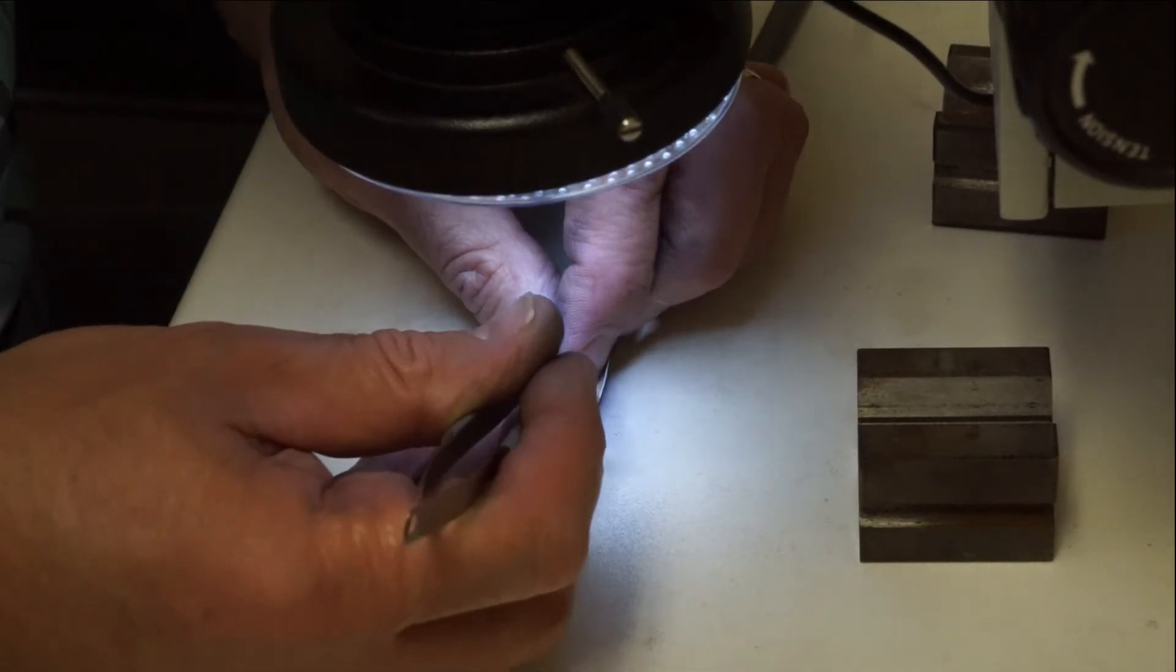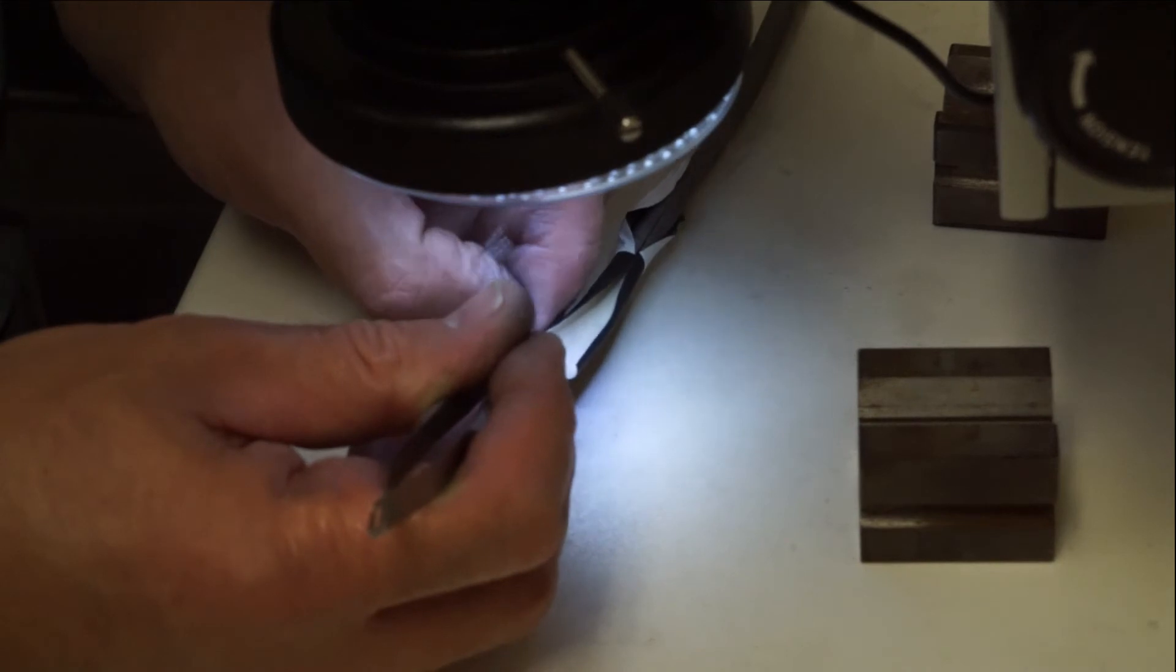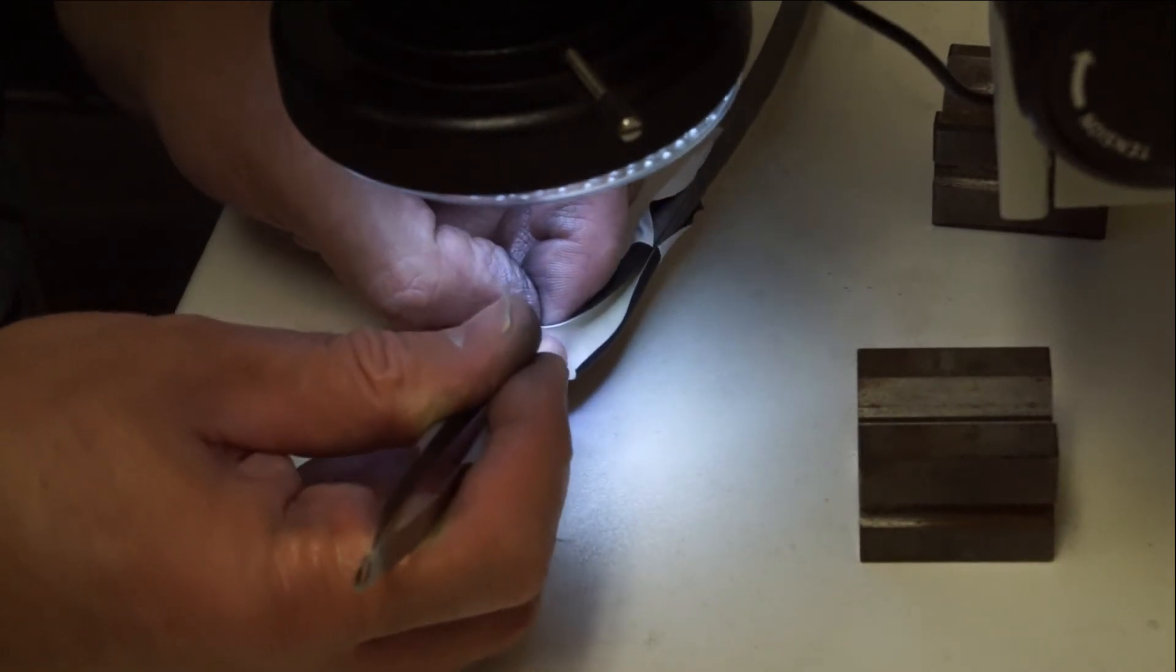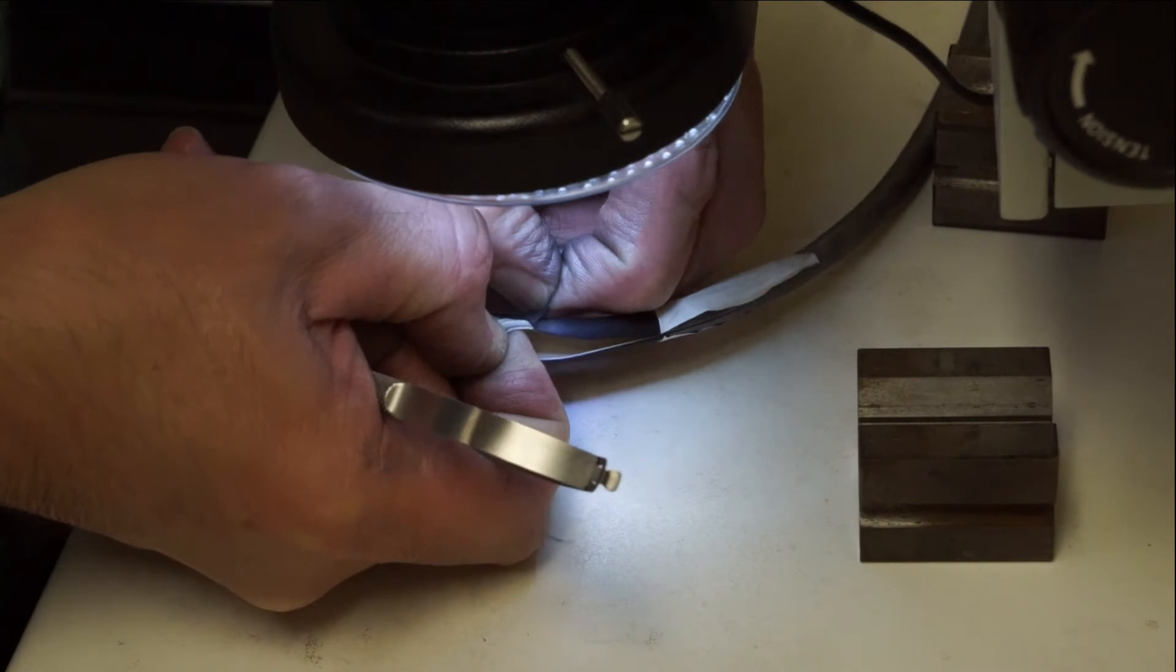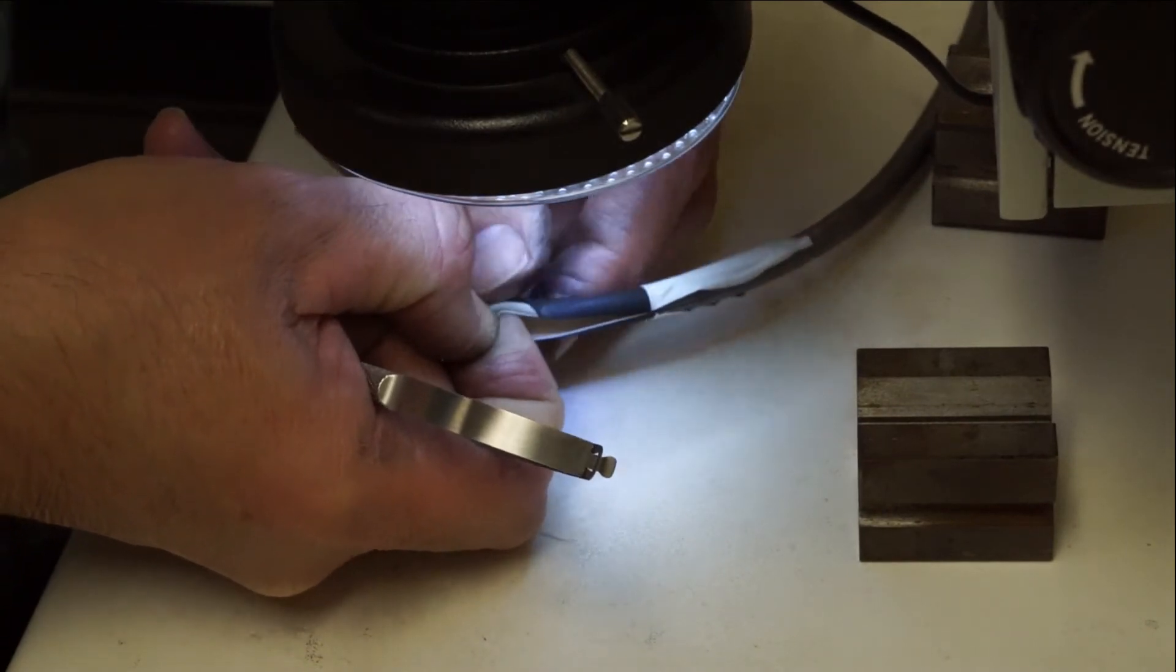When we remove the outer layer of the channel we can see the intermediate layer which is made up of a fluoropolymer layer that is used to seal the interior wall of the channel and enhance the impermeable nature of the channel itself.